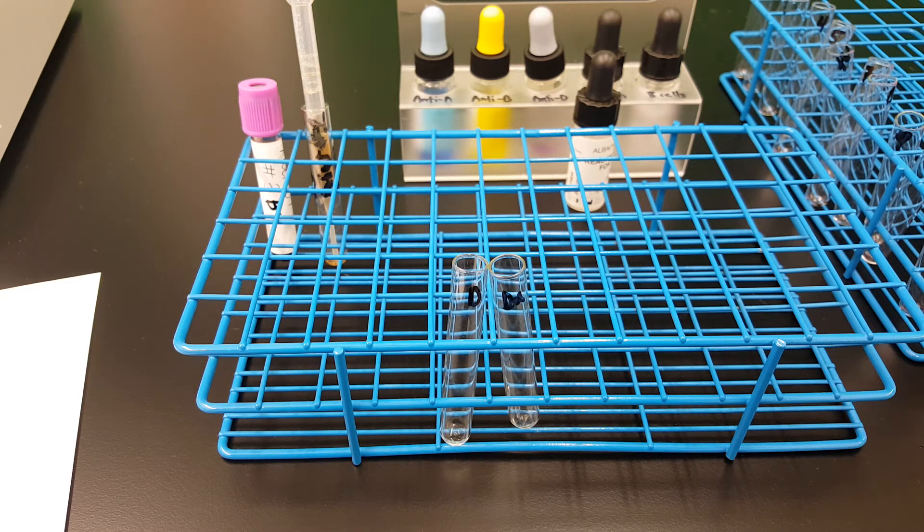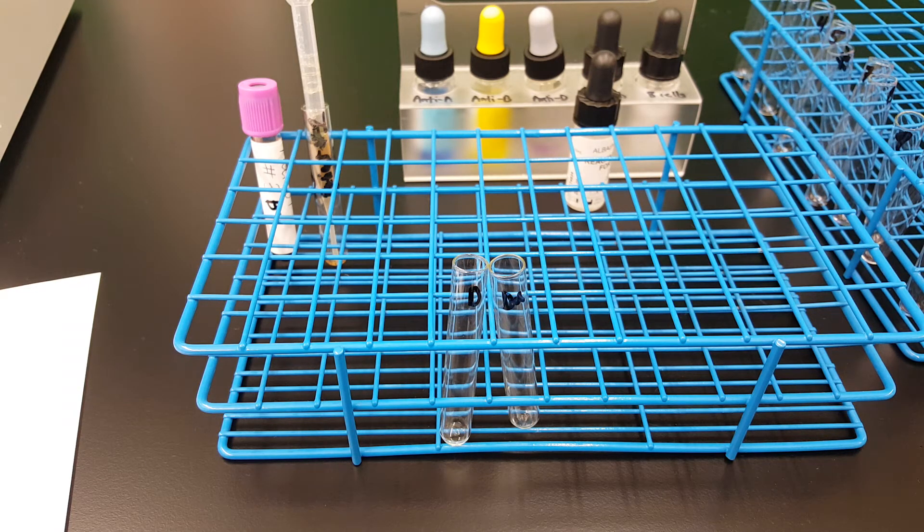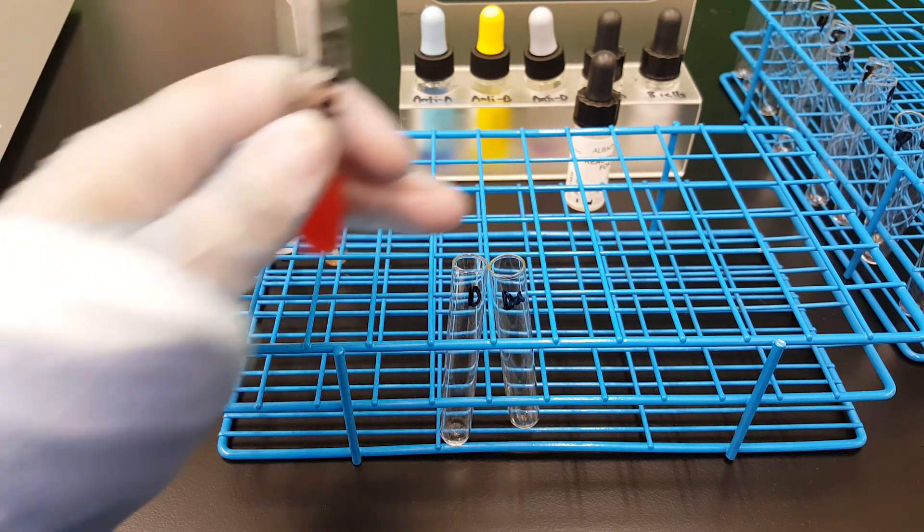You don't want to do this on any patient who has had a positive DAT, because that means the RBCs are already sensitized with the anti-D antibodies, and therefore you'd get a false positive anyway.